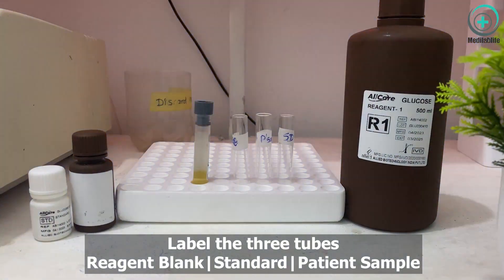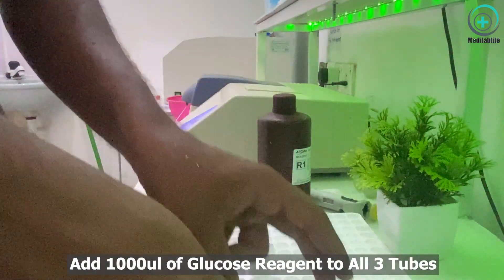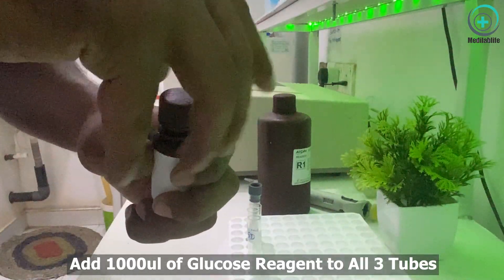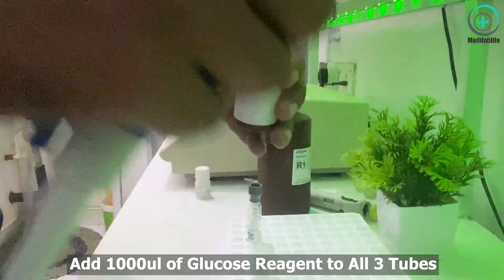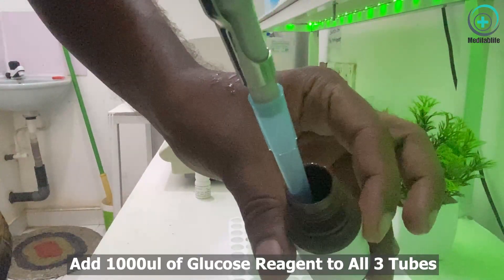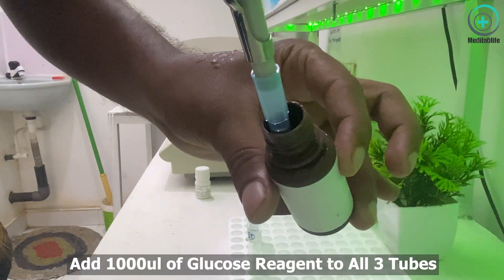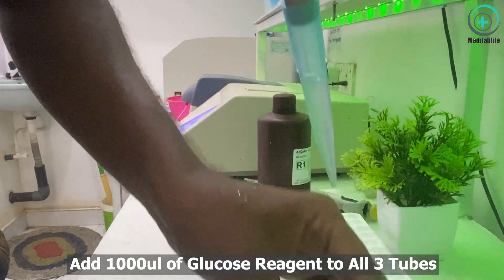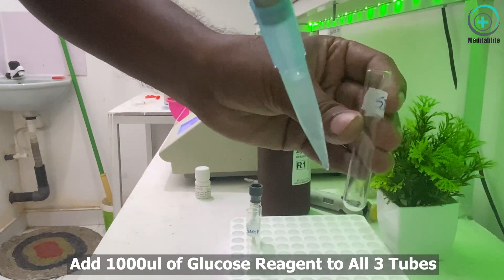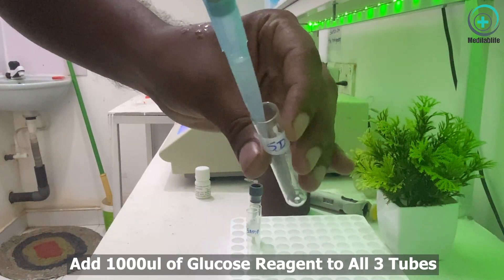standard, and reagent blank. Firstly, we get 1000 microliters of our glucose reagent from our reagent bottle and add it to the reagent blank. Following the same procedure, the other two tubes also get 1000 microliters of reagent added to the standard tube and patient sample tube.